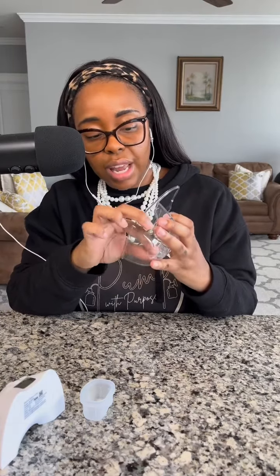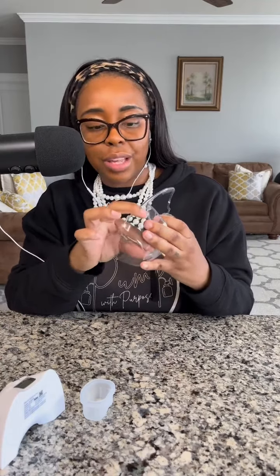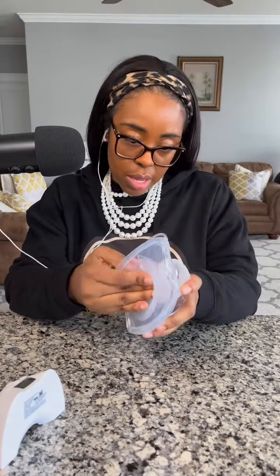You just want to be aware of that. You have to really make sure that it is in — and there we go. Now it's in, and then the actual backflow protector is here. You literally just push it down onto it, just like this. Then the flange piece — this is a 24, it comes with a 24 — it goes on the outside of this circle. Pop it on.